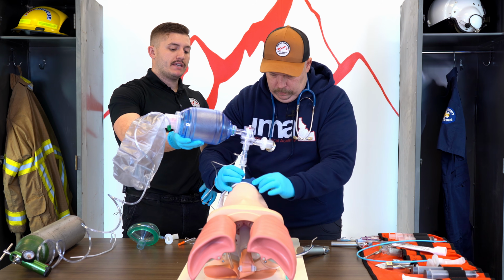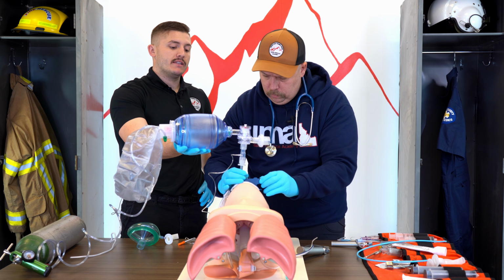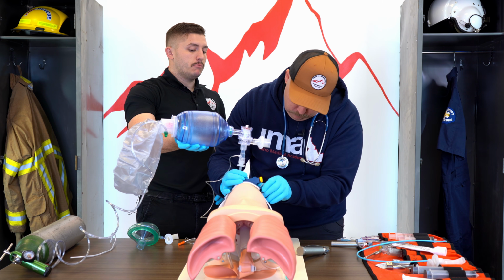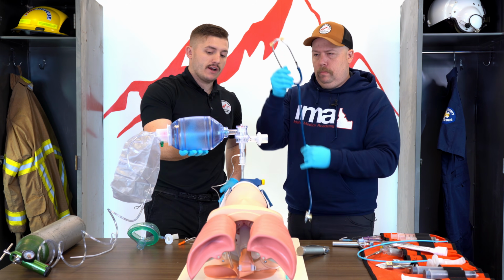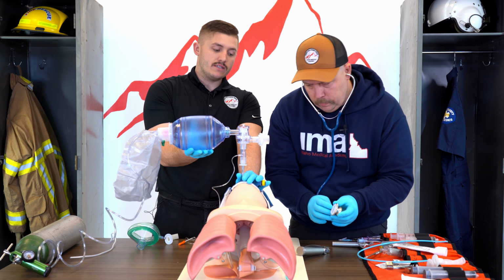Again, as an EMT basic, you will not be placing an ET tube. You will not be intubating the patient, but you are expected to assist, pull a stylet, and then bag your patient. This is something you might be stuck on for the entire ambulance ride into the hospital, is now ventilating and controlling this ET tube.